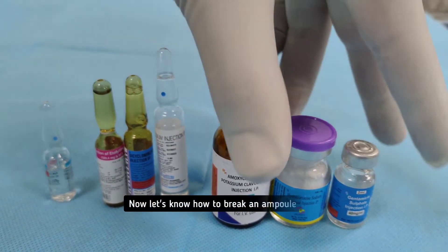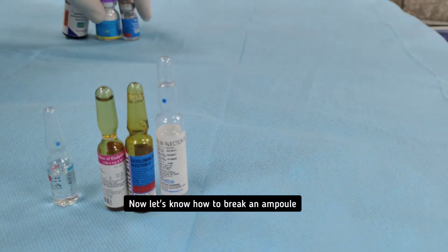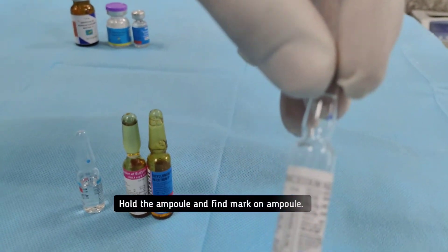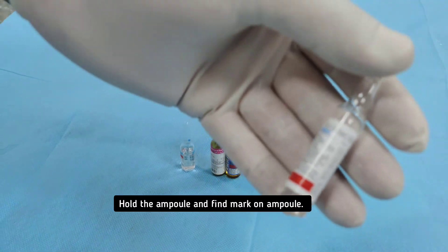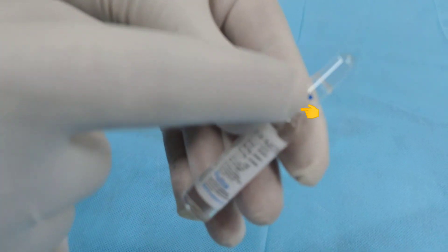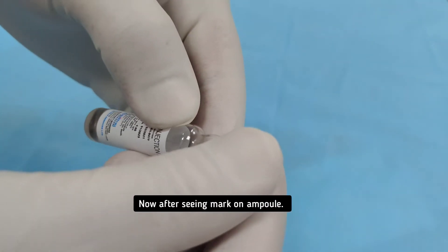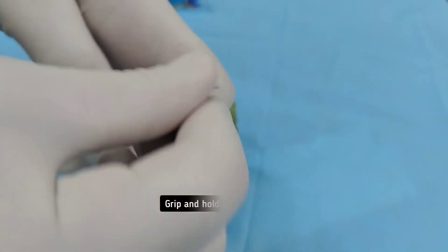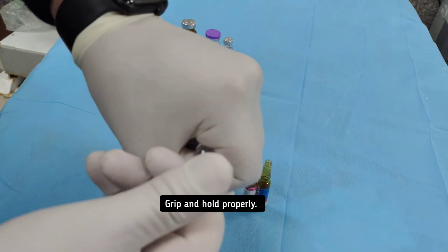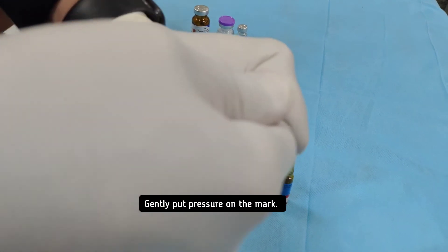Now let us know how to break an ampoule. Hold the ampoule and find the mark on it. After seeing the mark on the ampoule, grip and hold it properly. Then gently put pressure on the mark.